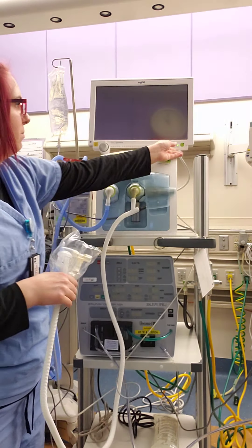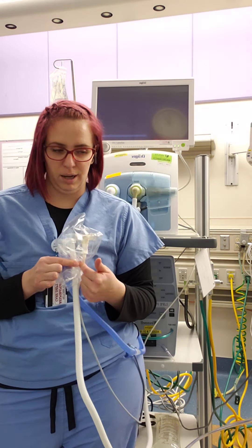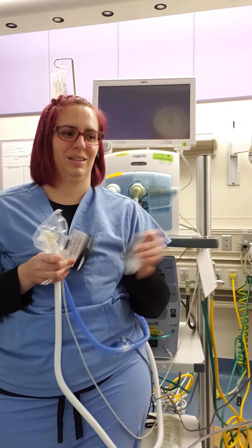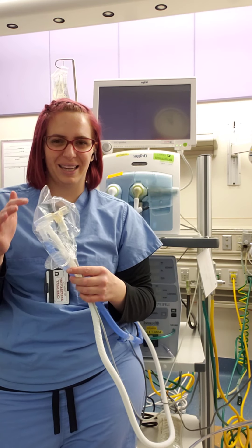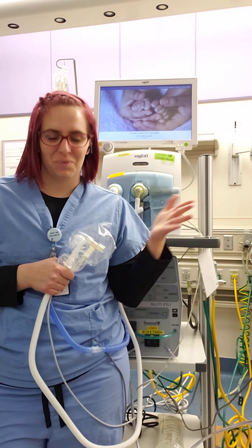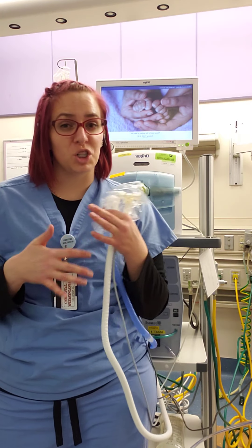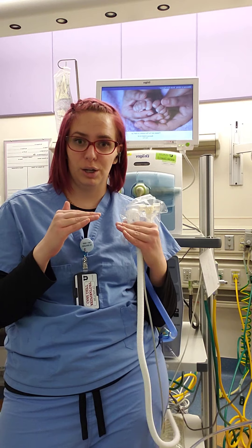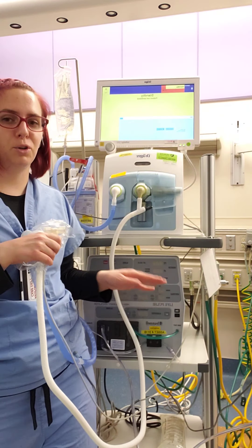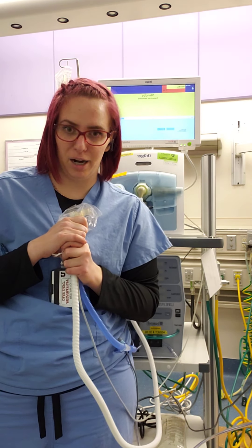Next we will move to the Draeger. We'll turn the Draeger on. At this time we're going to leave the flow sensor in because we have to do a circuit check and analyze our flow sensor. We will be placing the ventilator into a non-invasive mode to give our PEEP so that we can find the average mean pressure. With mean pressure, we want to try to achieve a mean pressure that is typically matching or a little bit higher than on the conventional ventilator — going about one or two lower on your PEEP.